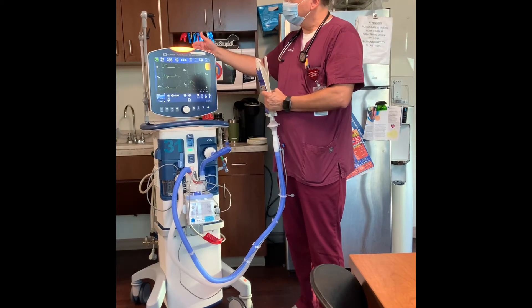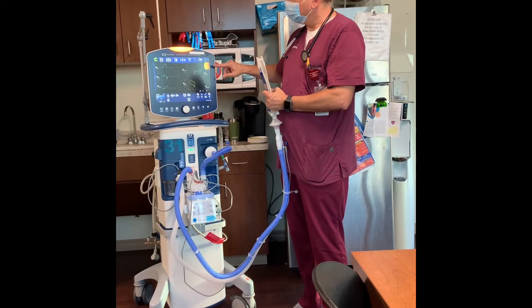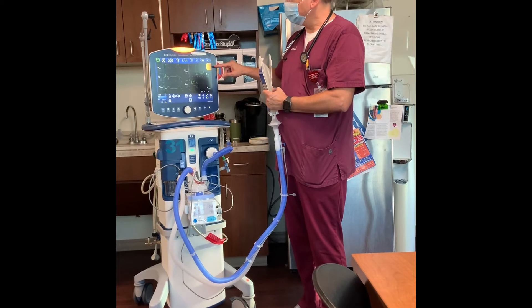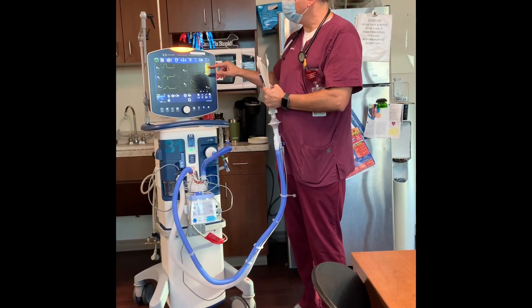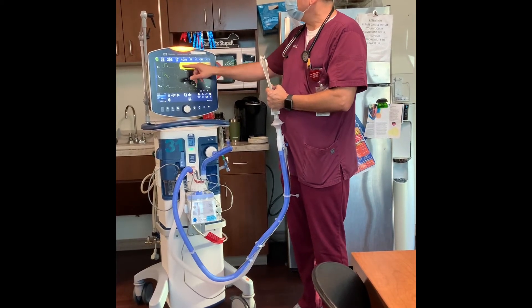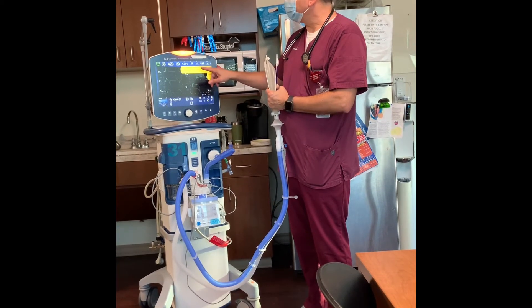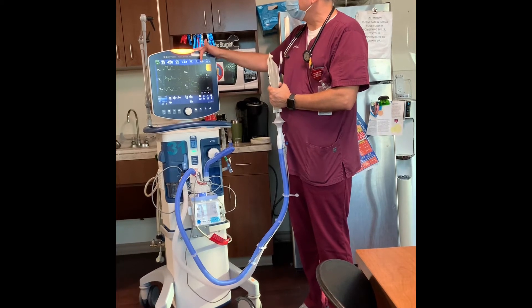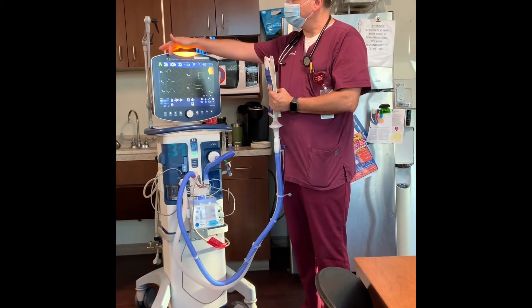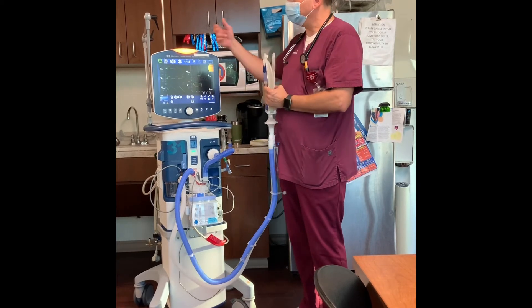Low and medium priority alarms will be yellow. If they progress to a high priority alarm, the indicator will turn red. This ventilator tells you what kind of alarm it is and what to do about it — there's a yellow tab explaining what's going on. In this case it says the last two mandatory breaths had pressure greater than the maximum allowed level, and it prompts you to check the patient. That was a pressure alarm — suctioning would hopefully alleviate it.